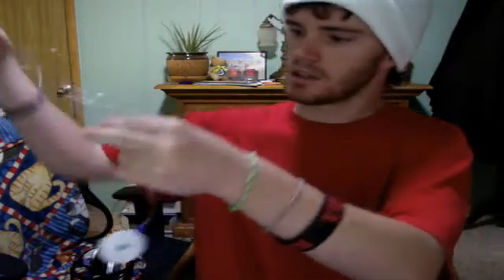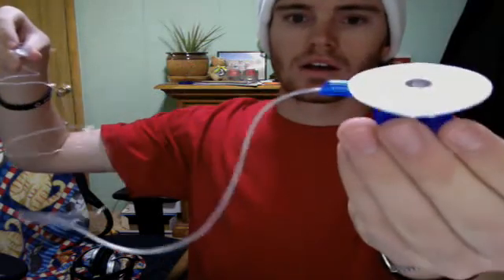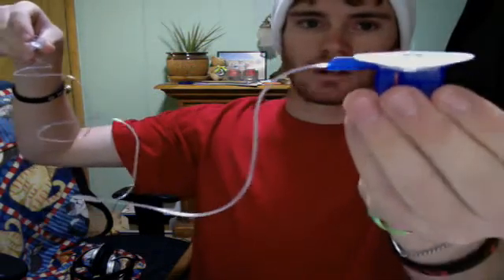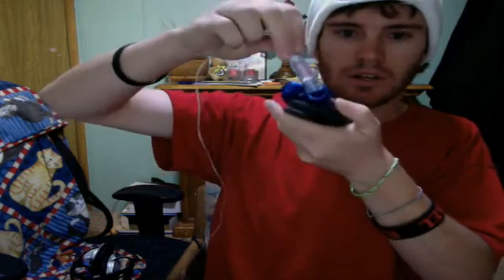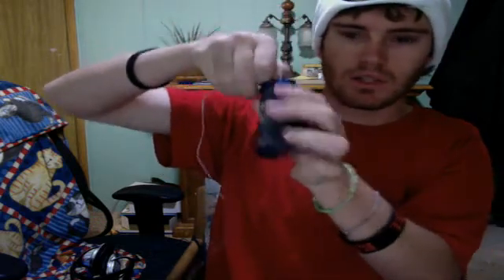Okay, that's done. I'm just going to untangle this cord here. You've got your little needle — there it is — it goes in and attaches to the reservoir. It's filled with insulin. Take this, twist it on, make sure it's nice and tight, put it right in there, give it a little twist.